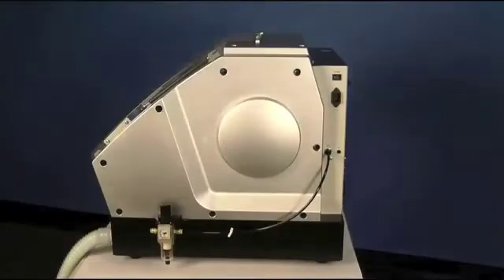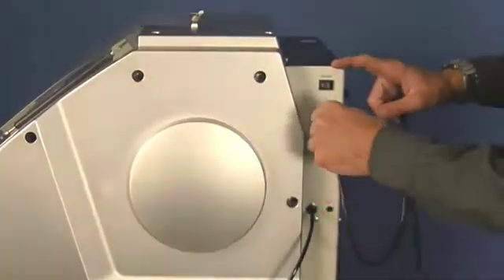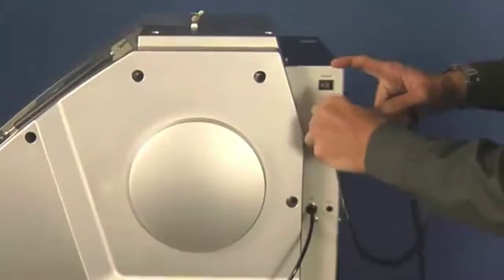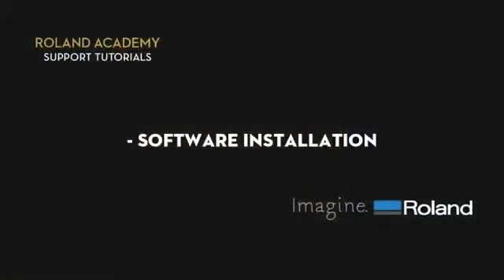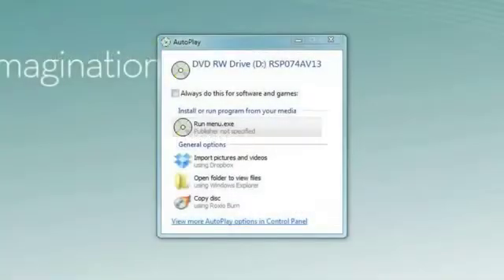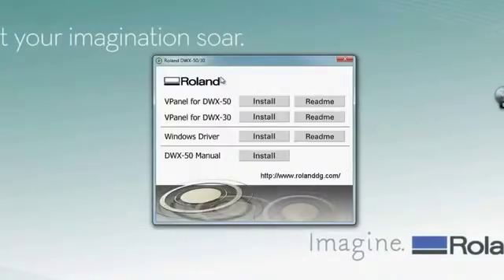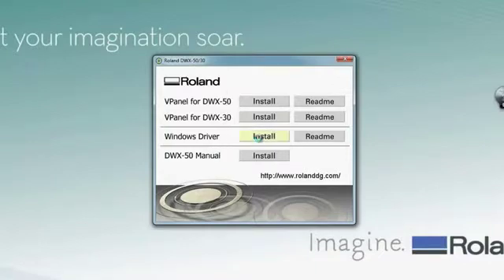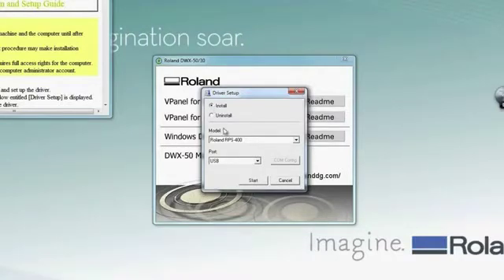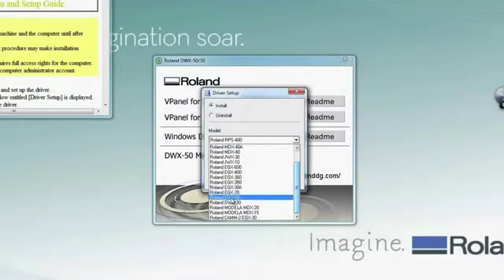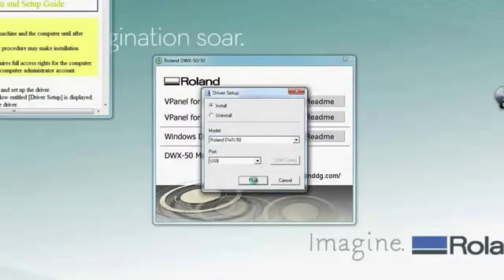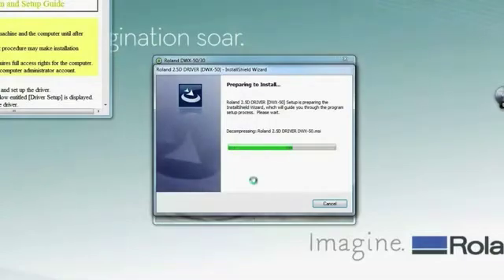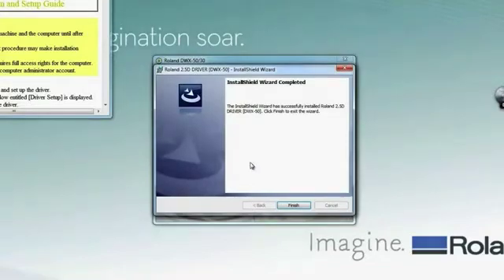The next step is to plug in your power cord into the outlet located just below the main power switch. Using the software CD that comes with your machine, run the software package and install your Windows driver first. Do this by clicking on the install button and clicking the install option on the driver setup. In the model, be sure you choose the DWX 50 machine in the drop down, and you will be connecting this through a USB port. At this time the unit should be powered off and the USB cable should not be plugged in.